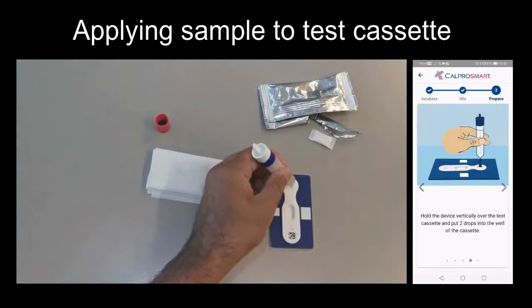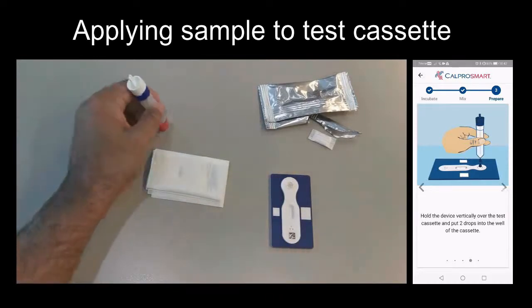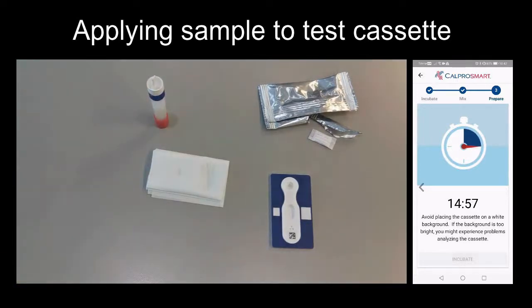Hold the extraction device vertically above the application well and apply 2 drops by squeezing it gently. Within a few seconds, you will start to see the flow. Once you apply the last drop, click the Incubate button on the app and allow to incubate for 15 minutes.